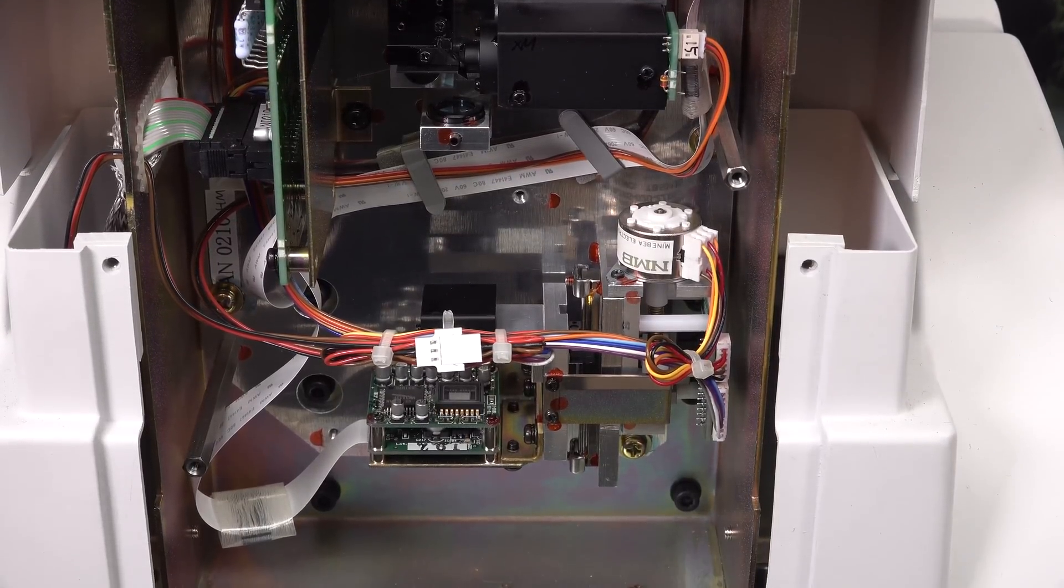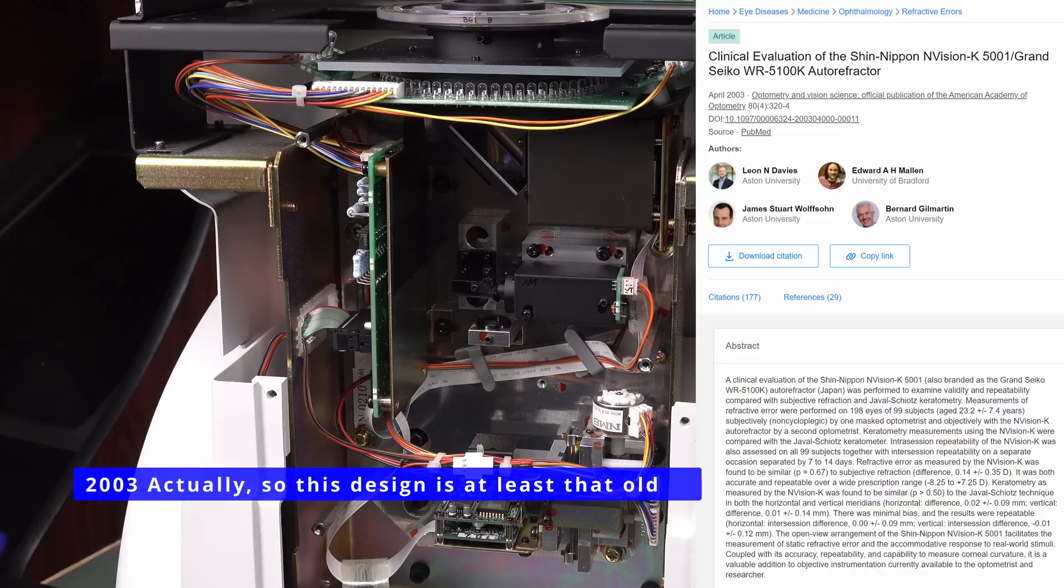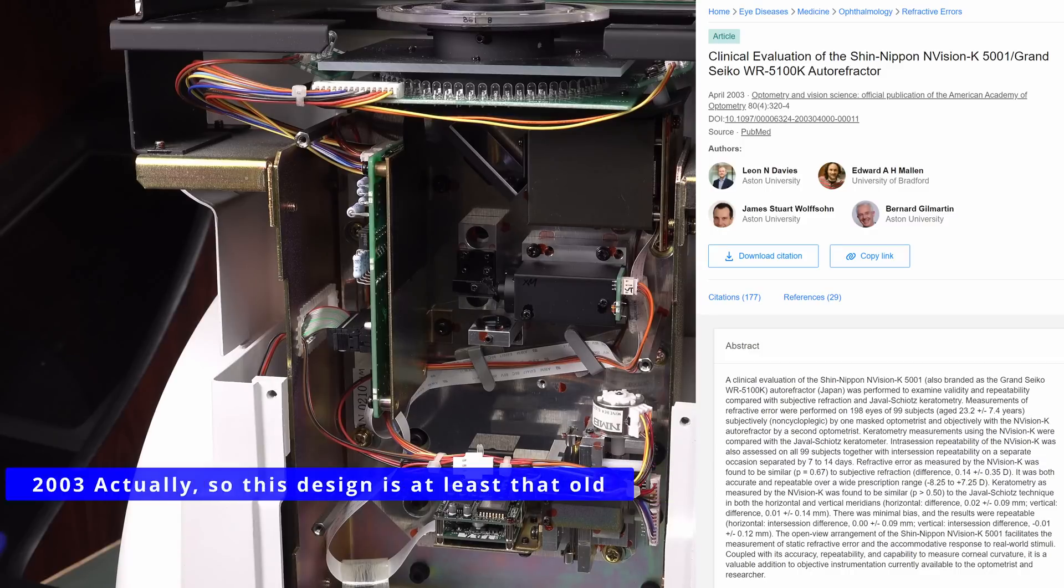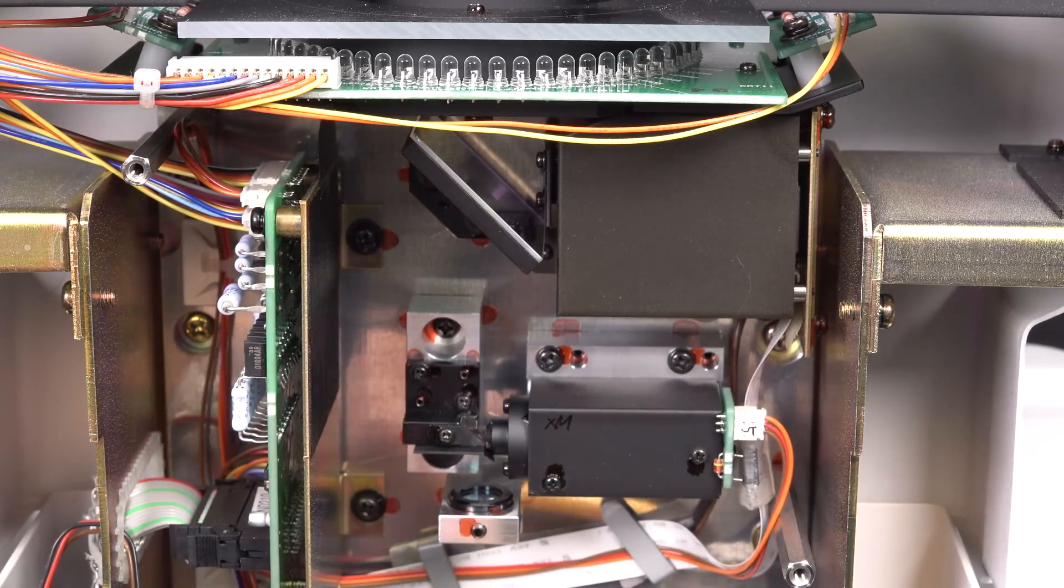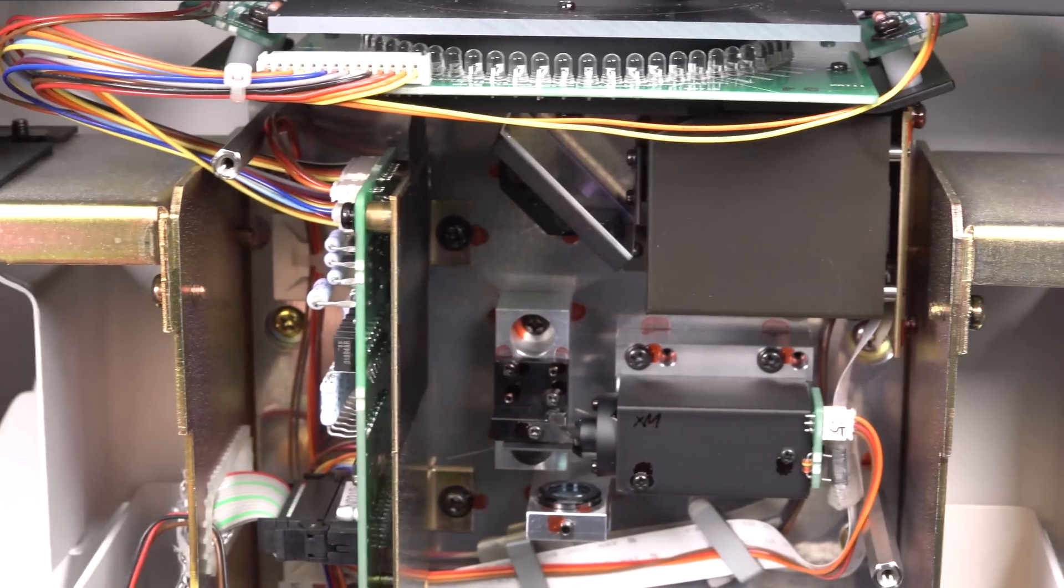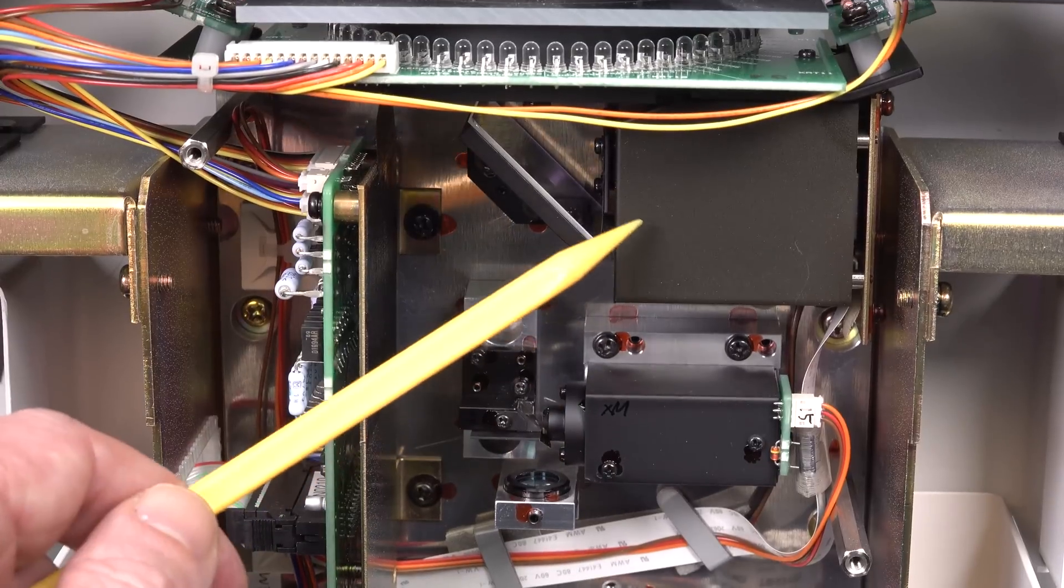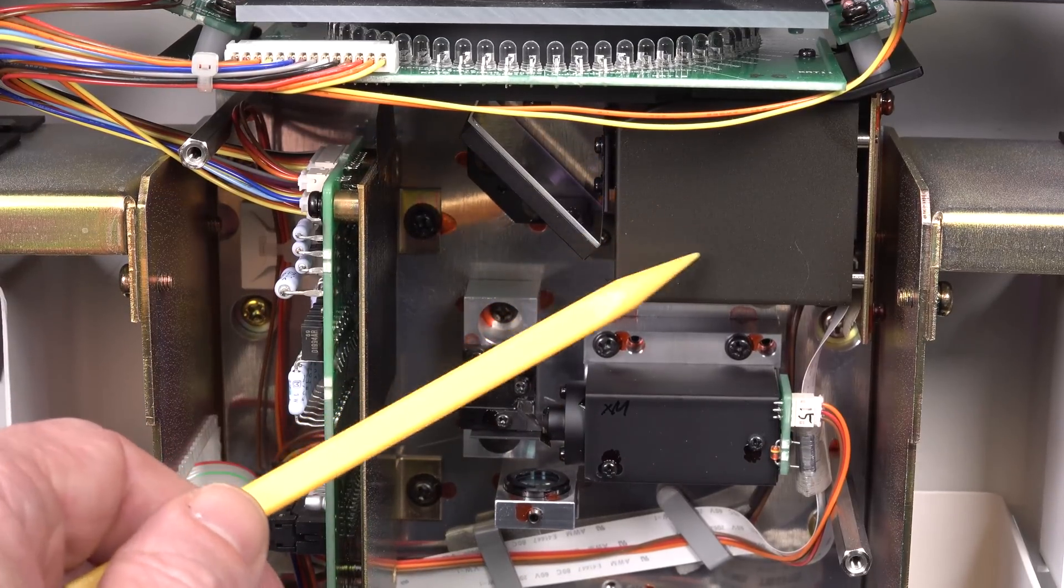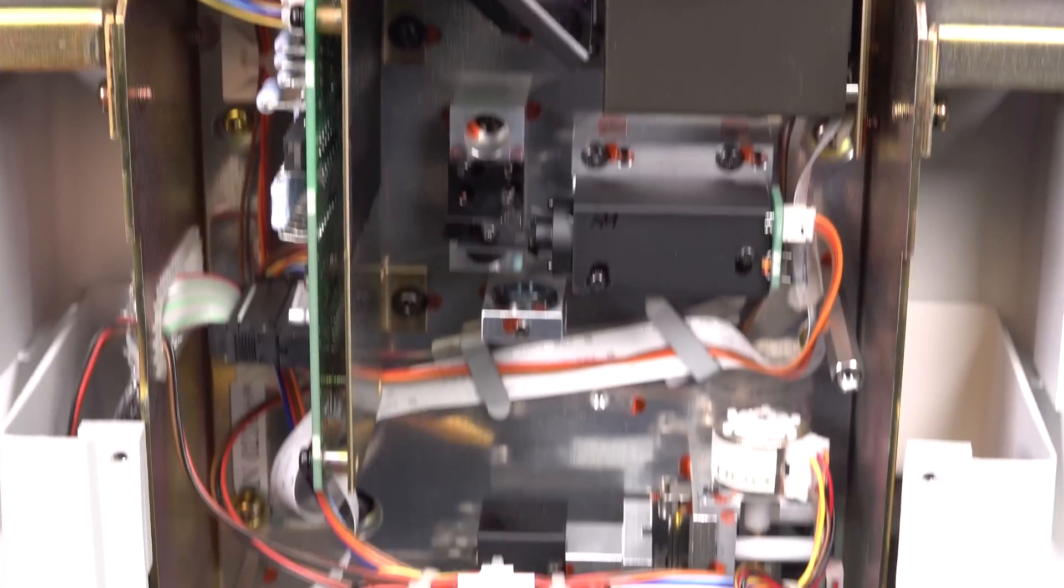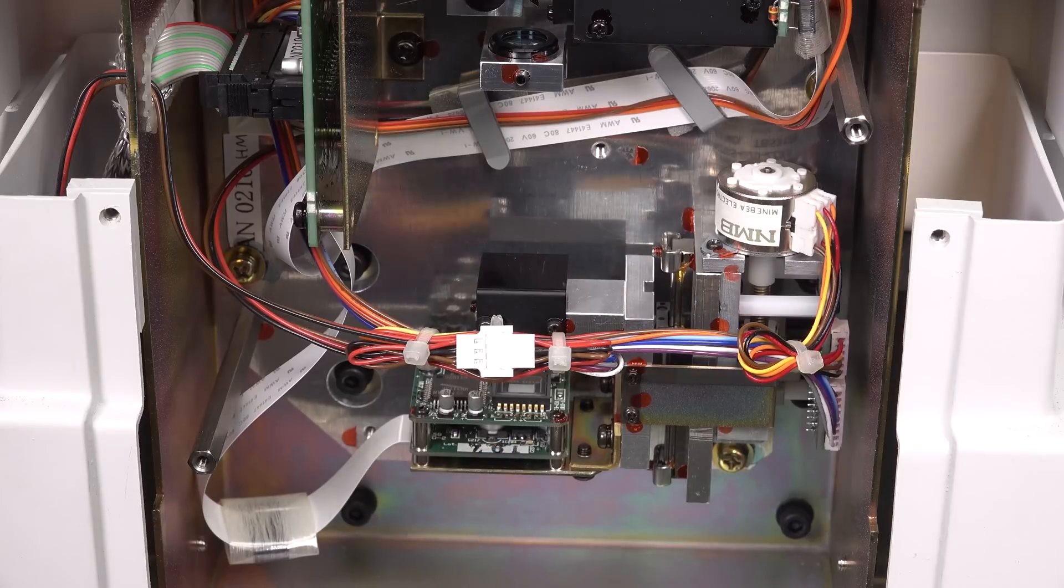But of course, the other big cost is in the certification of these things. As I said, this is old, but old model, but it is one of the most reputable ones on the market. So everyone trusts this, they use it in research and everything else. Actually, given the almost identical ribbon cable coming out of this top one, both ribbon cables coming out. Once again, my original assumption that this was a camera is probably correct, but I reckon we've got two cameras. I reckon we've got one for the keratometer and one for the auto refractor down the bottom.